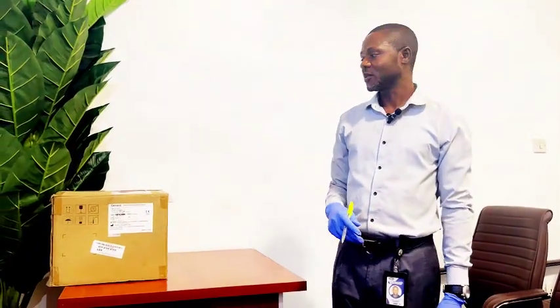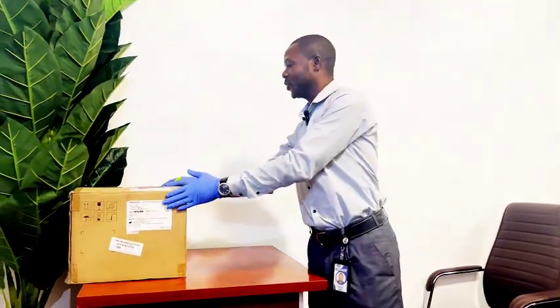The first process of installation is the unboxing. I am now unboxing the equipment.